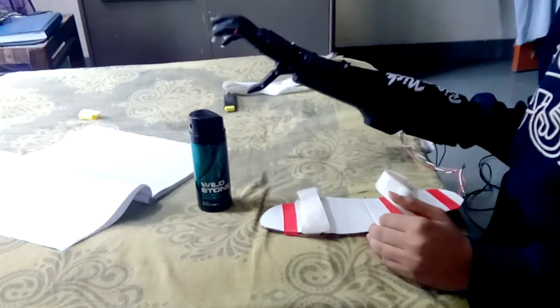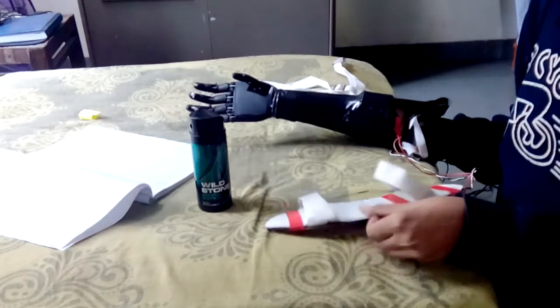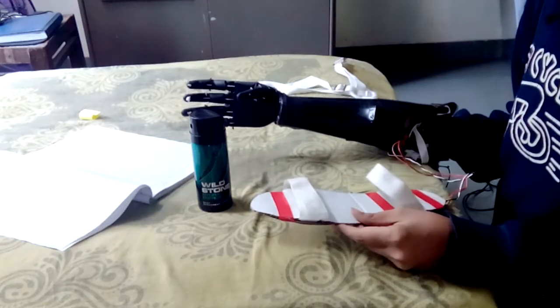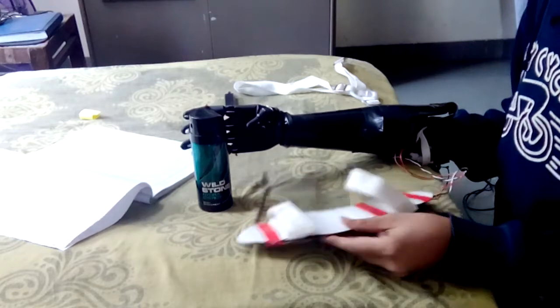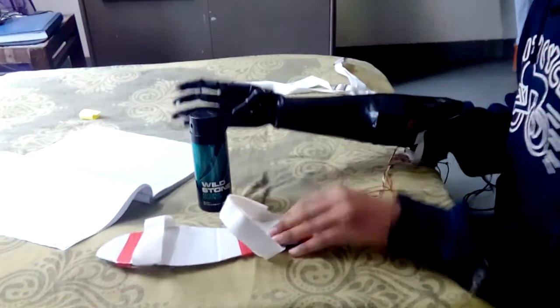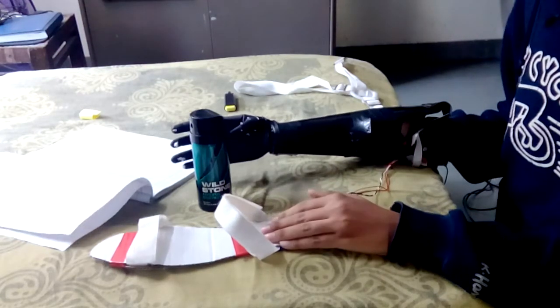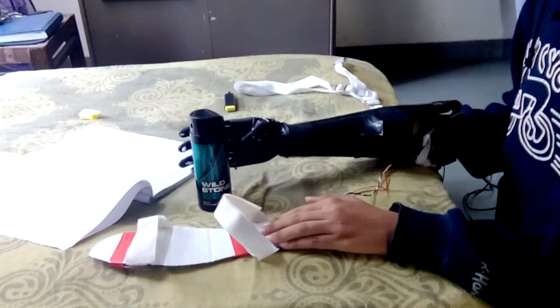Hey, hi, this is a bionic hand and it's totally controlled using the foot. So let's see if it's possible for this hand to grip this bottle. To make it functional, I have to put a little pressure on the heel.